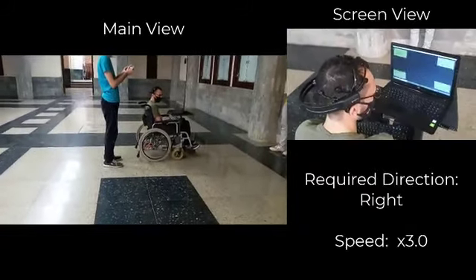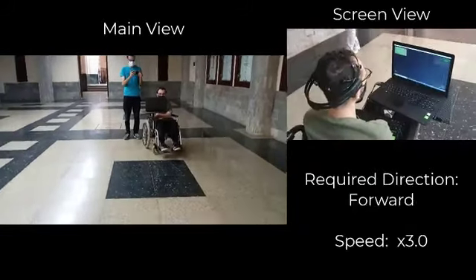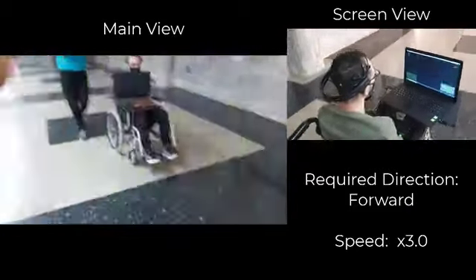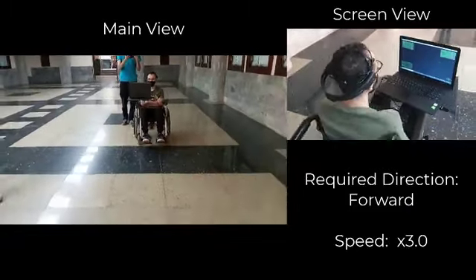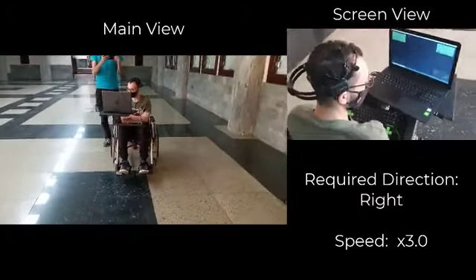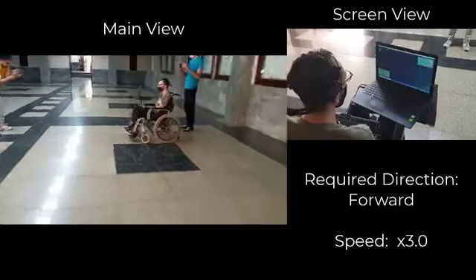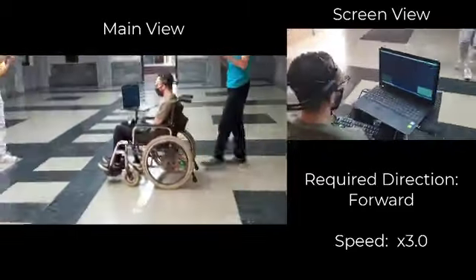We will now speed up the video, as the wheelchair will always predict the instruction correctly. Our tests show that our system can predict the correct instruction with 99% accuracy.